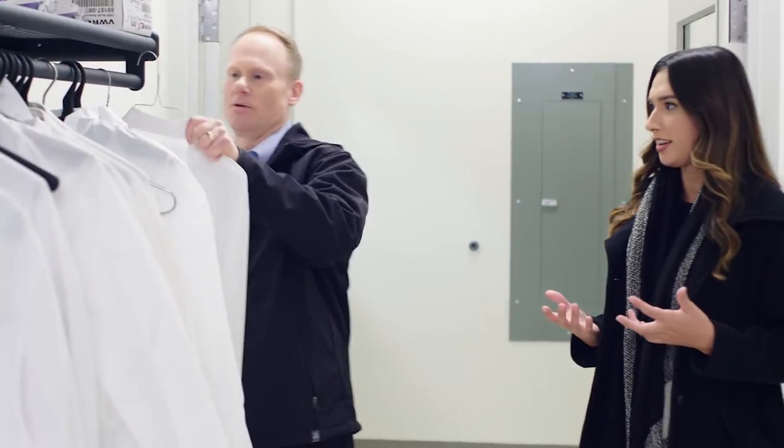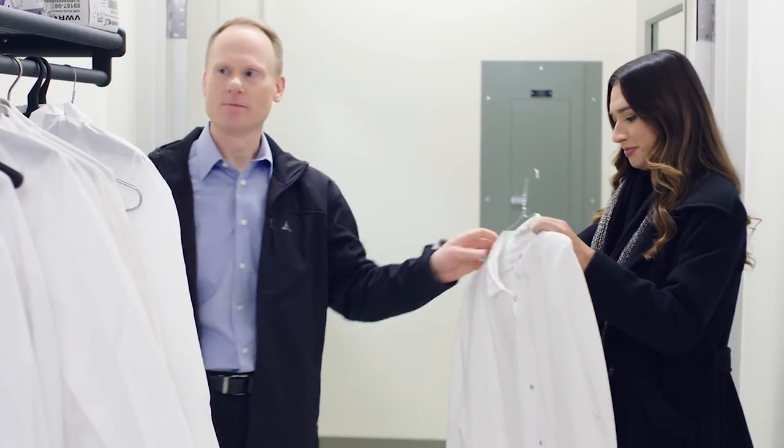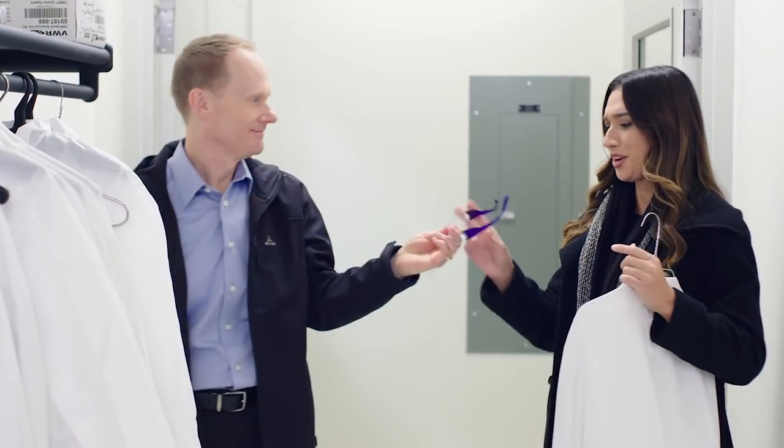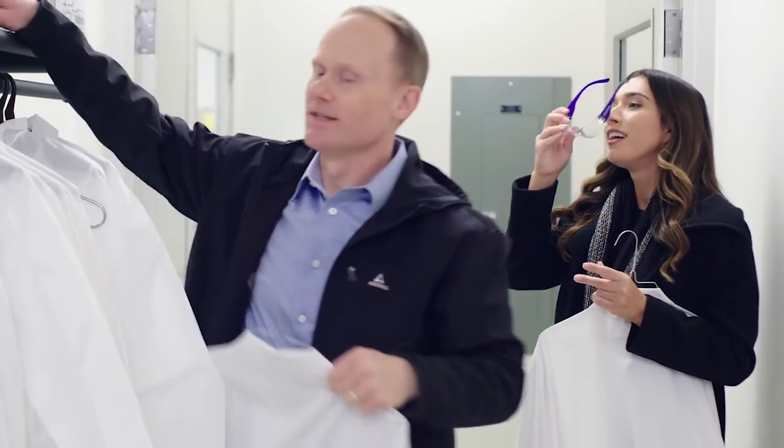So let's pull the curtain back a little bit. What happens to the test tubes after they're drawn? Great place to start. Put this on so nobody asks me what you're doing here. What are these, x-ray goggles? No, those are still in development.